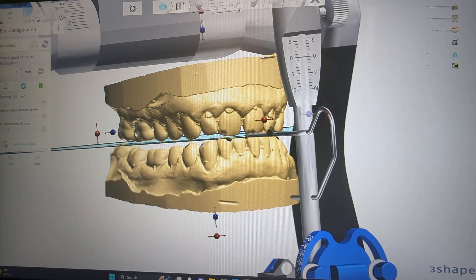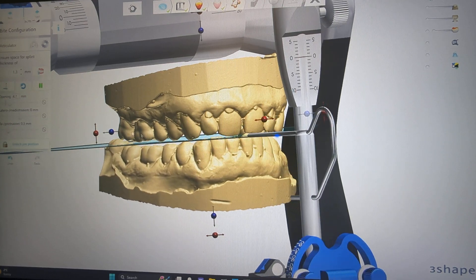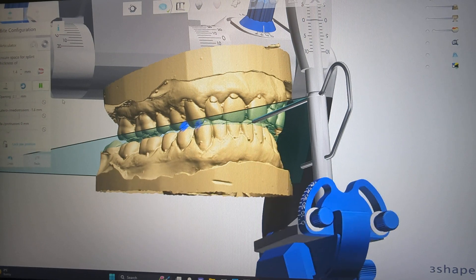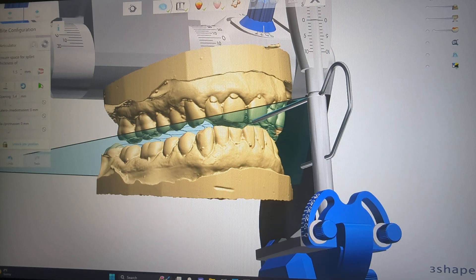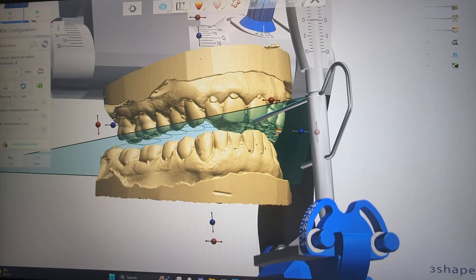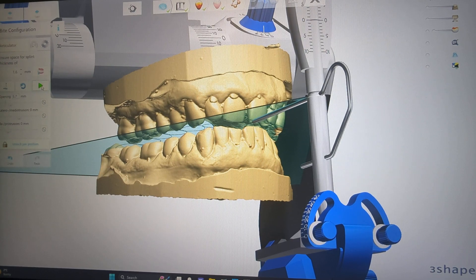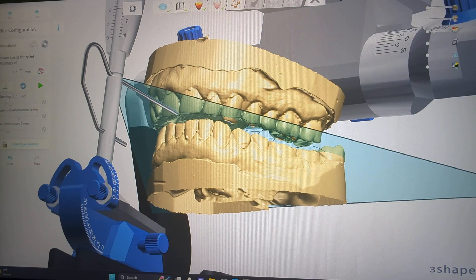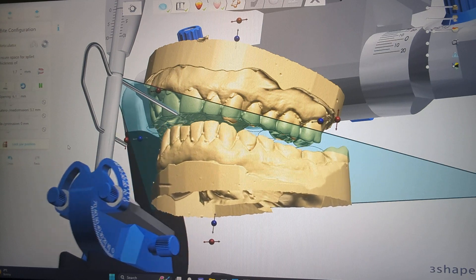I do play the excursions. I do have some discluding here so we'll have to fix that — we'll open it up a little bit more. Set that, lock it, and now you can see we have a little bit right in this spot here. Let's just open up a little more and try one more play. It's a pretty serious cusp right there, so we've got to make sure that works. Lock the jaw — there we go, completely opened up.